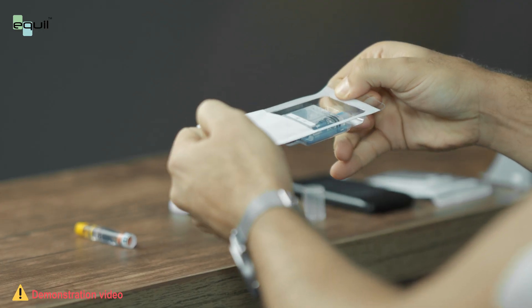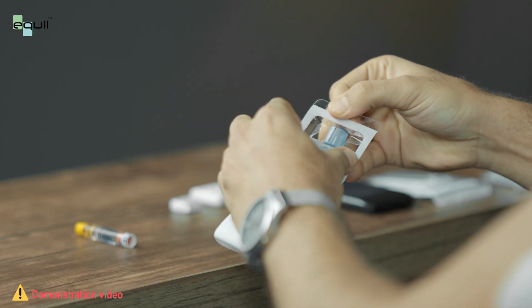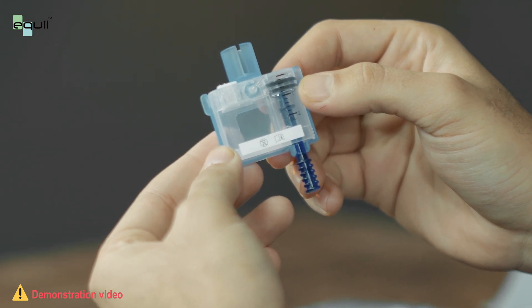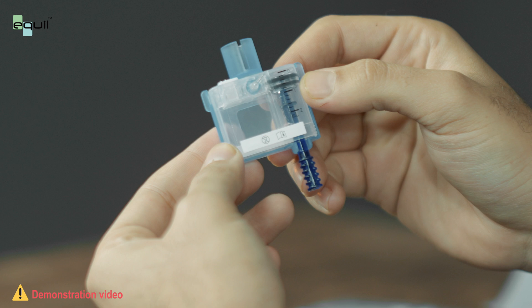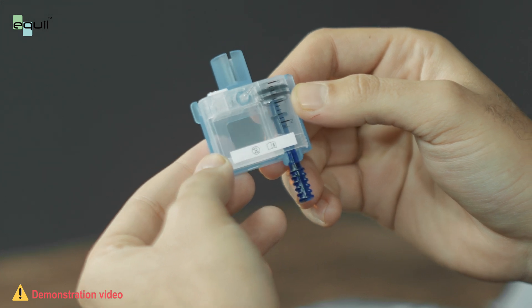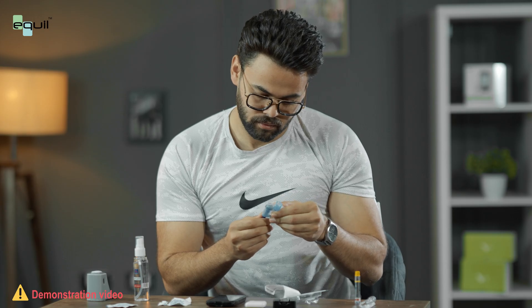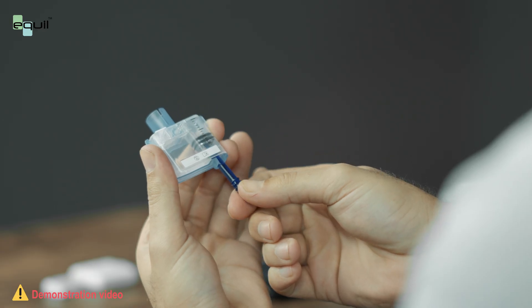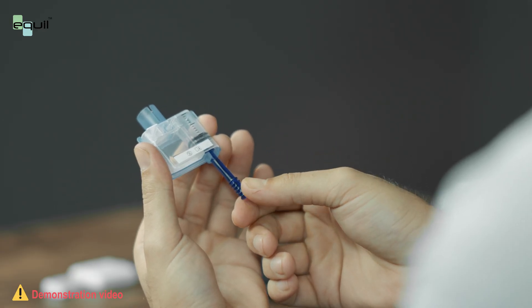Remove the insulin reservoir from the packaging. The reservoir is surrounded by a plastic part which allows us to fill it. This is known as a fill adapter. Before using a reservoir, it is recommended that we grab the pull rod and pull it to the end. Then we push it back. Repeat this procedure three times to ensure that it works properly.